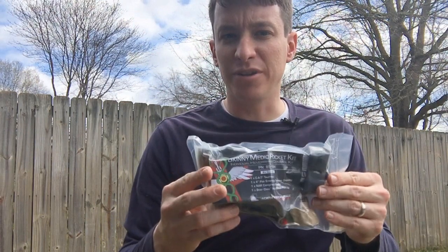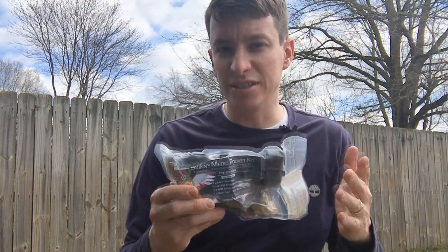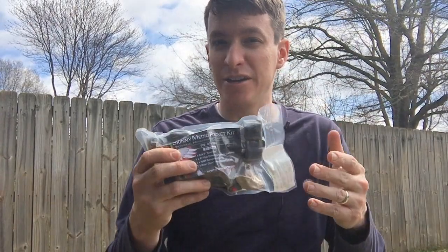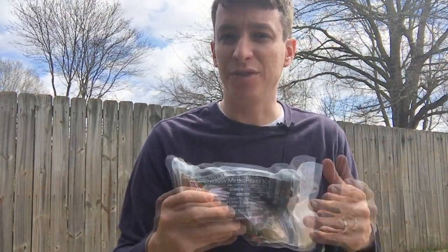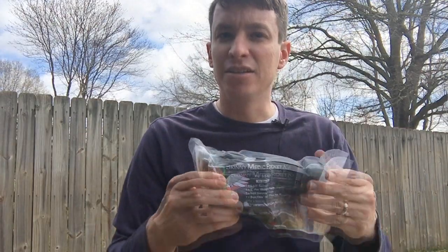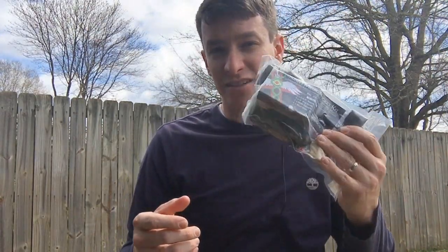When I first came out with this kit, I caught a little bit of flack because I called it a pocket kit. Obviously I know this is not going to fit in a pair of blue jeans, but there are places you can carry this. You can carry it in your backpack, your purse, your laptop bag, or multiple different ways — even a pair of BDU pants if you're on duty or training. This will slip right down in there. This is an affordable trauma kit that's going to save someone's life.